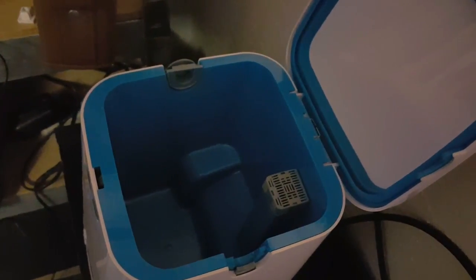There is a filter inside and a check valve kit that they say to replace about every six months. Other than that, this is probably one of the easiest setup things I've run across. I did notice that once I took the mask out and smelled it, there is a bit of a strange smell, but if you just start your machine and let it blow for a little bit, that smell dissipates pretty quickly.